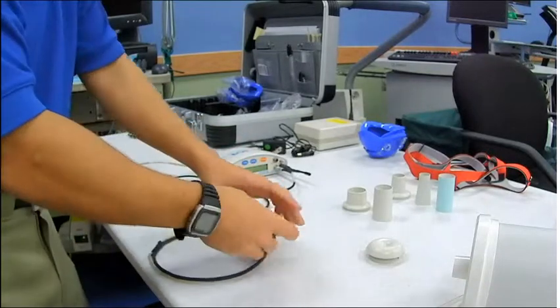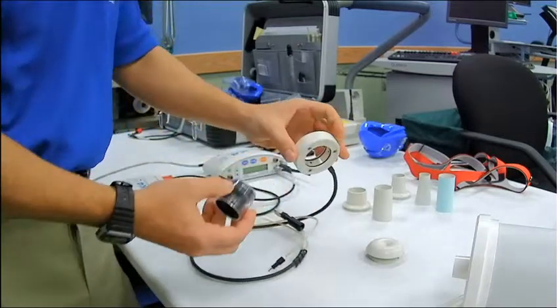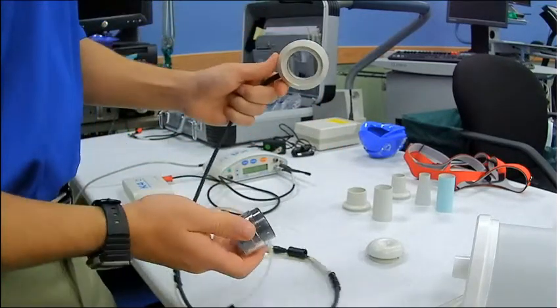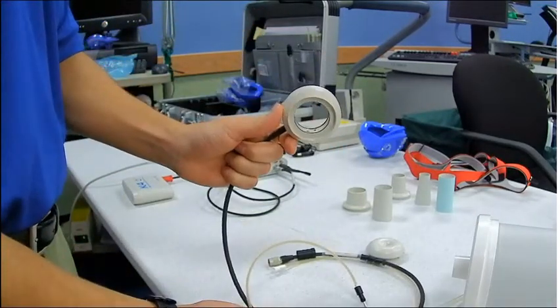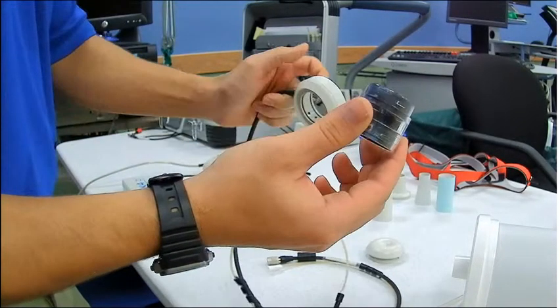Come back over here to the flow meter, and I want to push the fan out just to show you guys what it looks like. Take a look at the cylinder that it goes into. Let's find a good frame to look at.